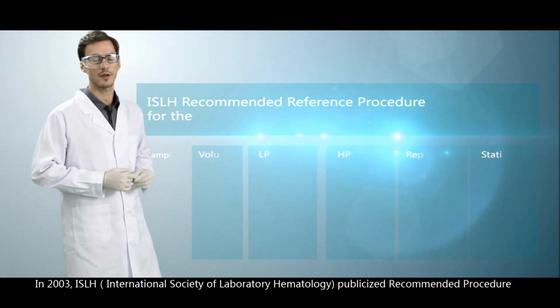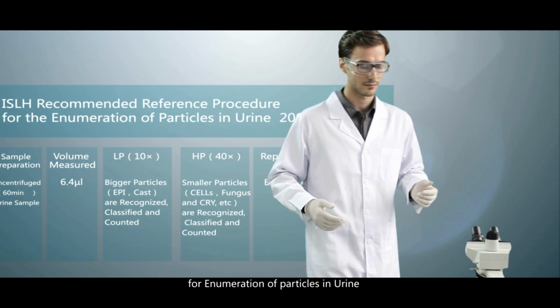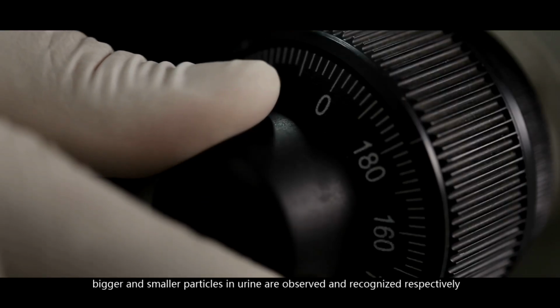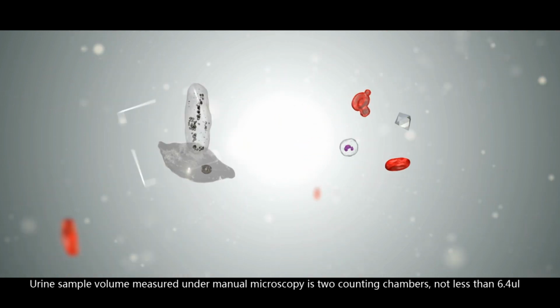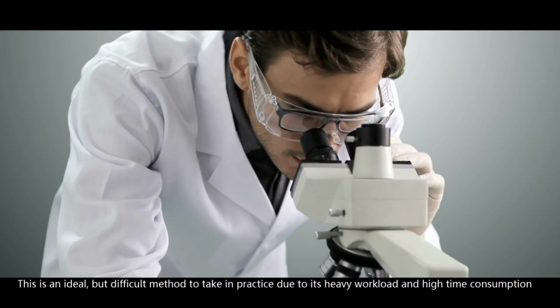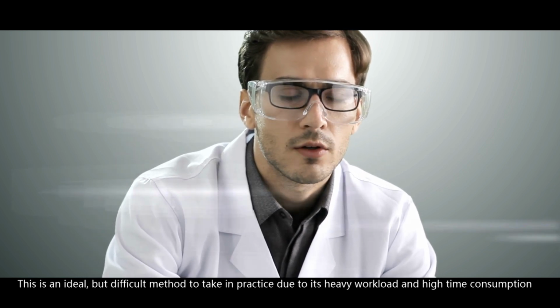In 2003, ISLH, International Society of Laboratory Hematology, publicized recommended procedure for enumeration of particles in urine by low-power and high-power lens of the microscope. Bigger and smaller particles in urine are observed and recognized respectively. Urine sample volume, measured under manual microscopy, is 2 counting chambers, not less than 6.4 microliters. This is an ideal but difficult method to take in practice due to its heavy workload and high time consumption.